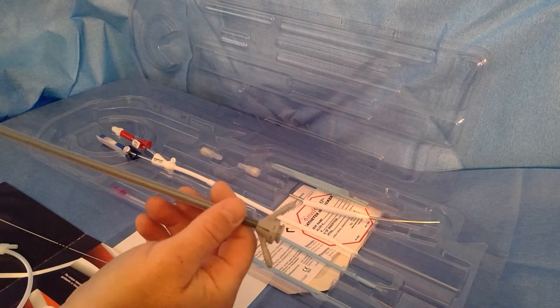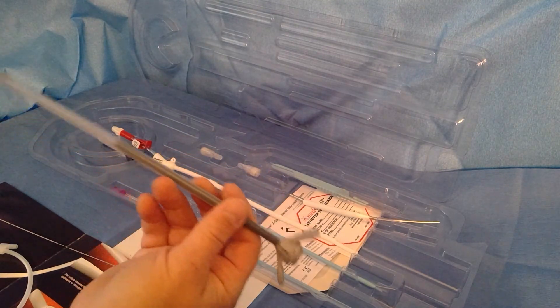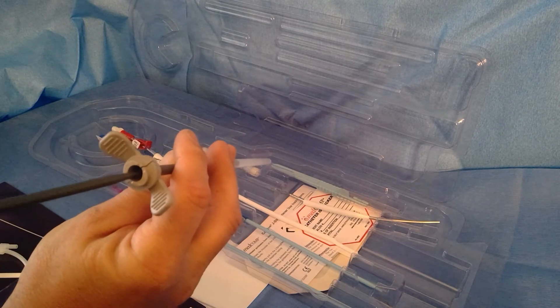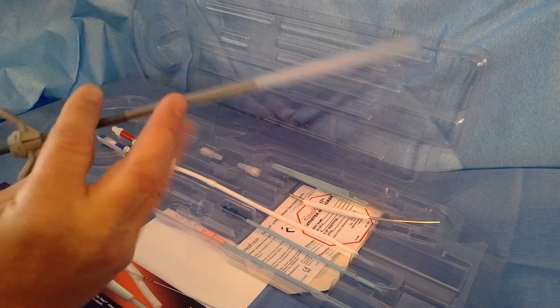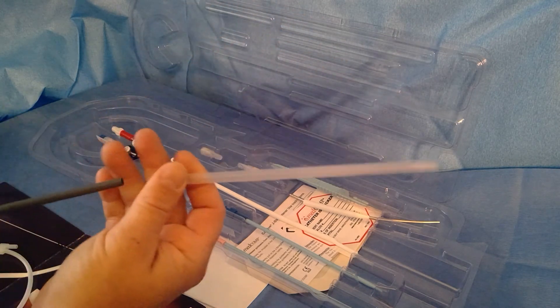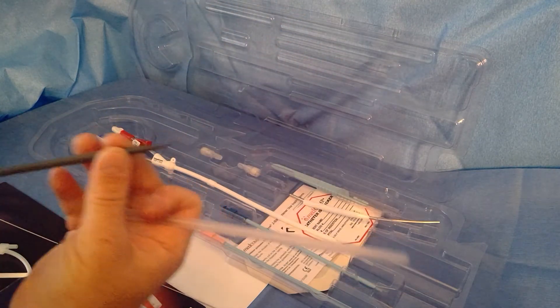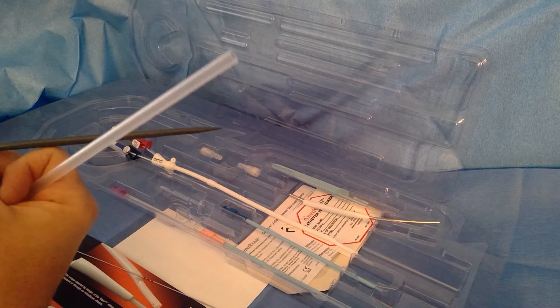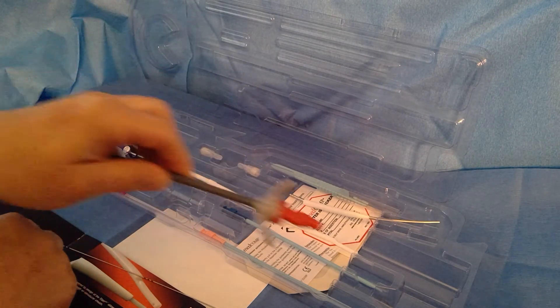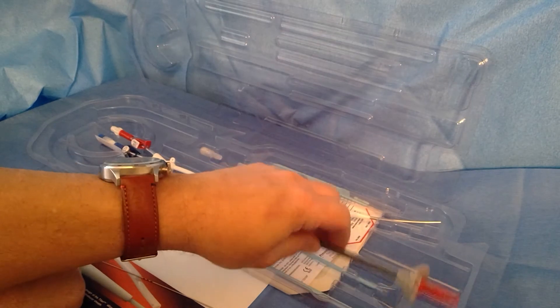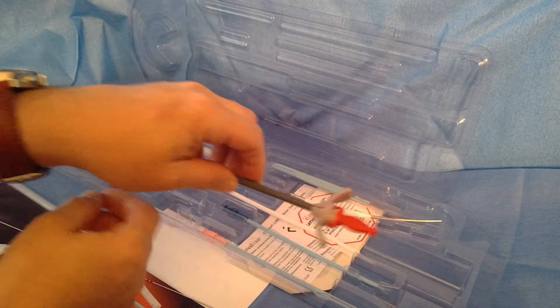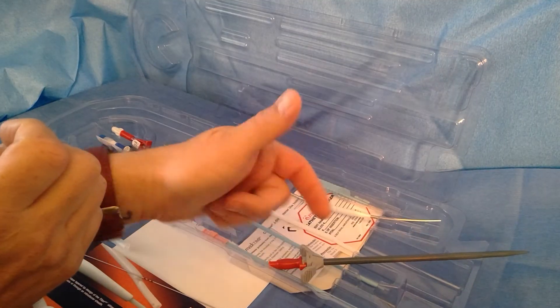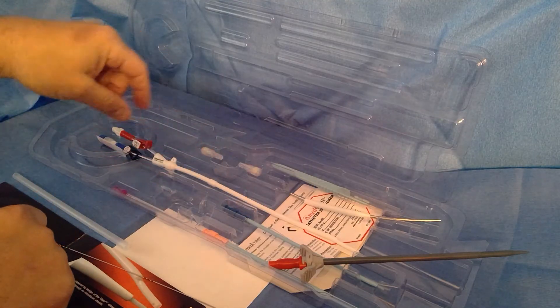We updated it a few years back. It's a really nice sheath air guard. It's got a valve in there so you can minimize the risk of air embolus. It has a great taper on this sheath, so it goes in rather smooth. I've been with some physicians working in the lab and they don't even use the dilators, although I'd recommend using dilators. There's many people out there that do not use them because this sheath goes in so easy, even though it's a 16 French peel away.